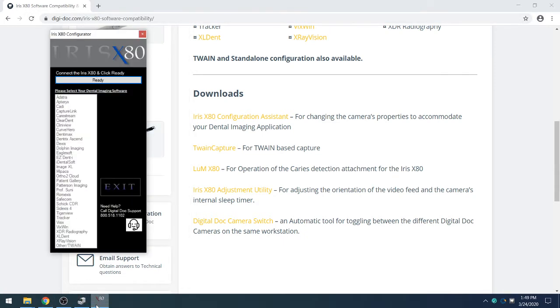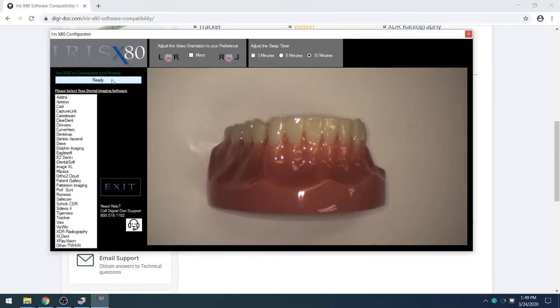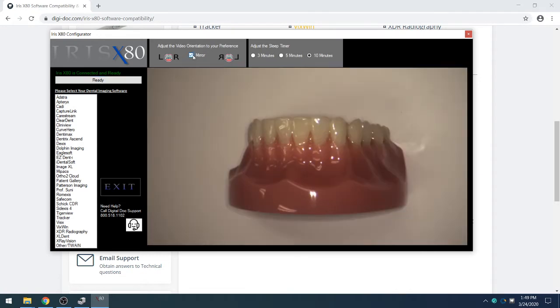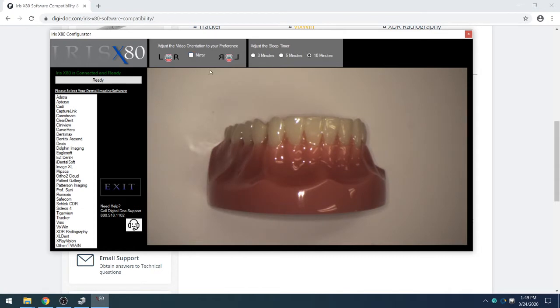Once it has been confirmed, you can go back into the Configuration Assistant and click Ready. At this time we're going to adjust the settings for the video. You can either leave it as the default setting or a mirrored image. You can also adjust the sleep timer to be either 3, 5, or 10 minutes for when the camera is not being used.